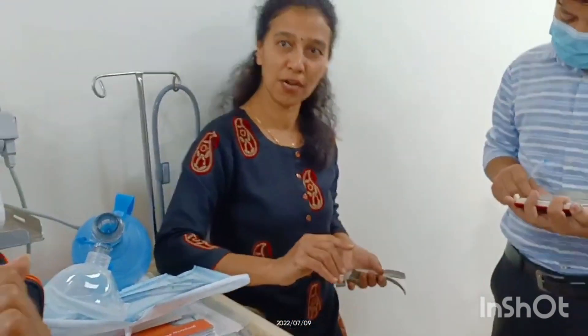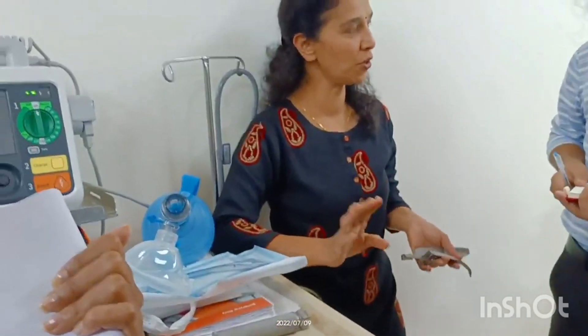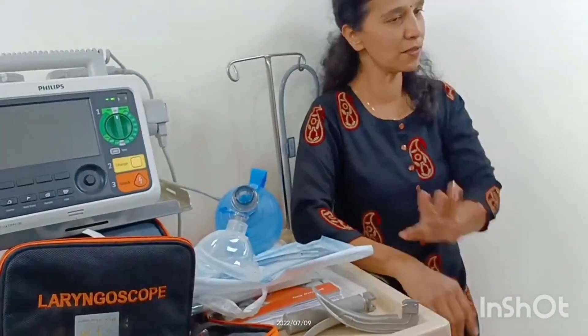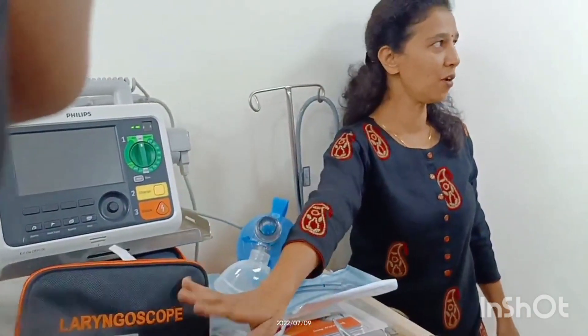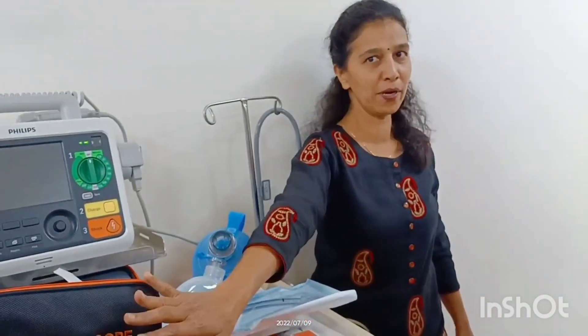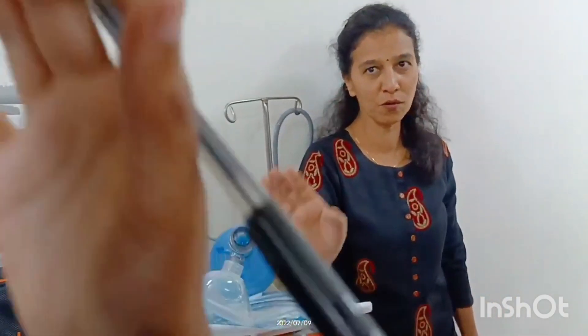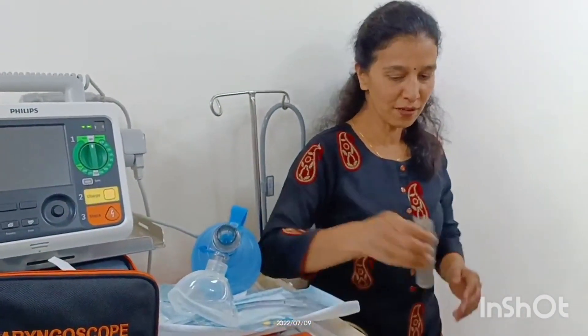The blades are always referred to by size numbers — not small, medium, large. The intubation tubes are also in sizes. Pediatric blades also have sizes, but I won't cover those since we don't do pediatric intubations regularly.